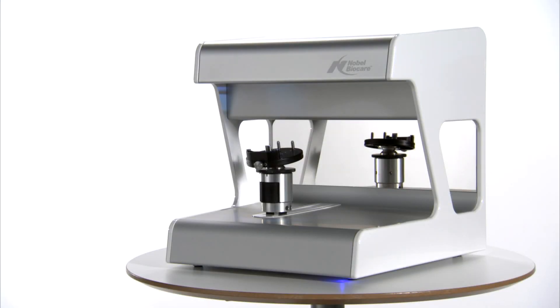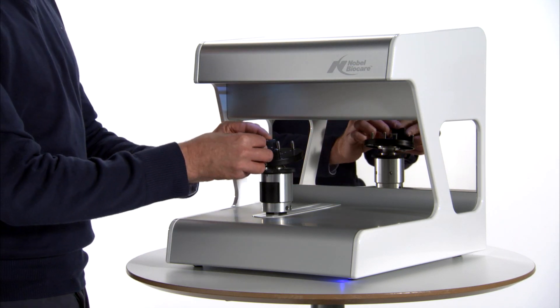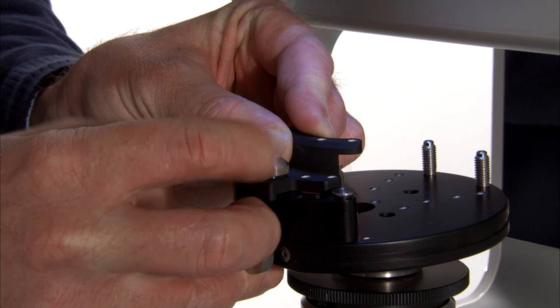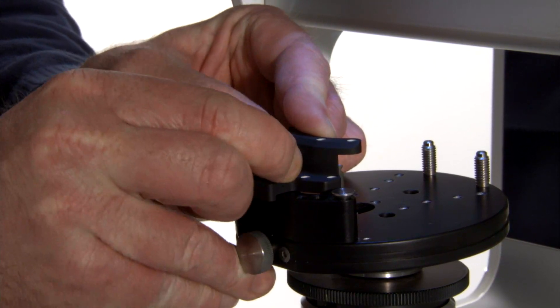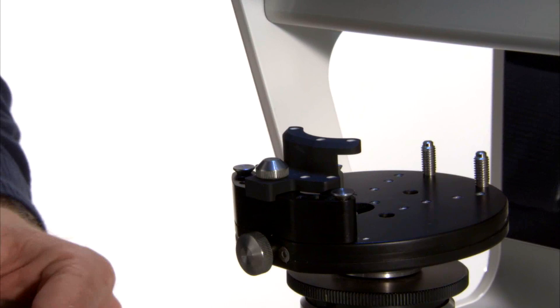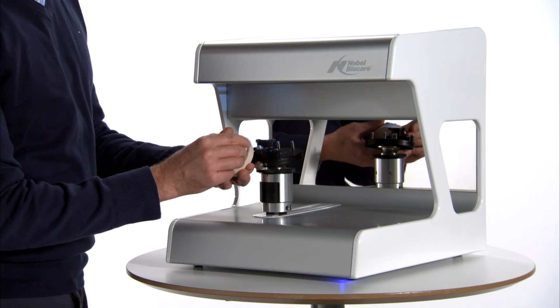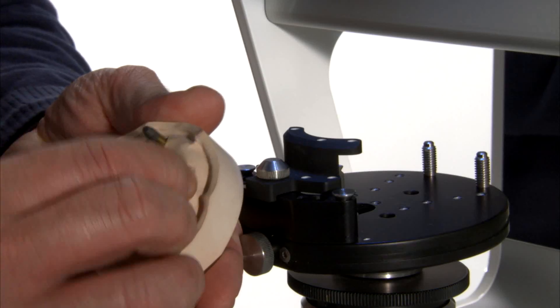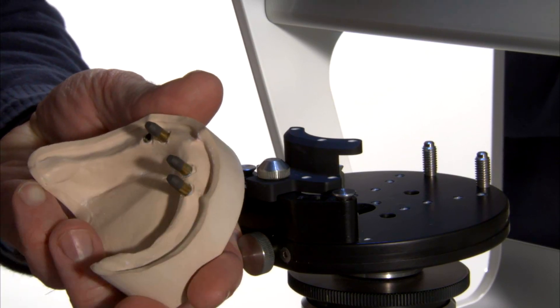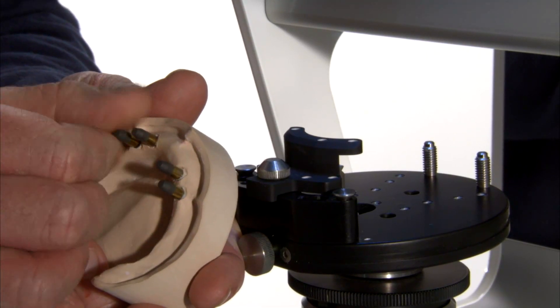Mount the reference jig on the base model holder. Fasten the locking screw on the jig and ensure that it is tightened securely. Ensure that the reference spheres are clear of dirt or optical spray before scanning. Attach the appropriate non-engaging model position locators to the corresponding implant replicas in the model by screwing them in clockwise.